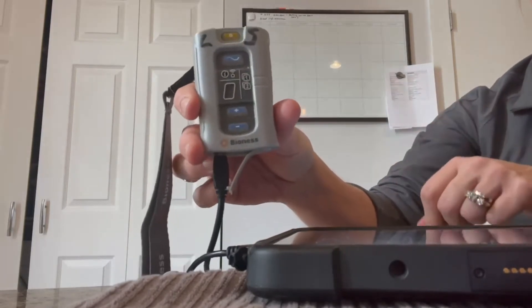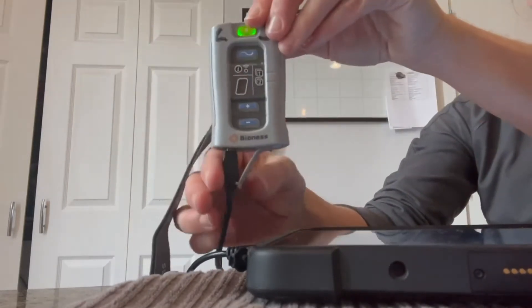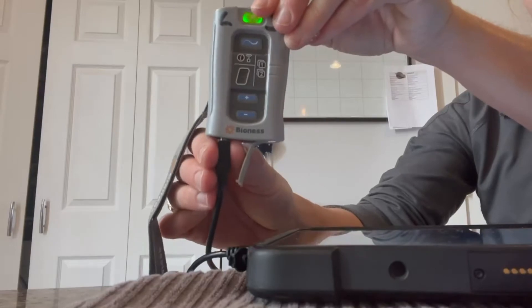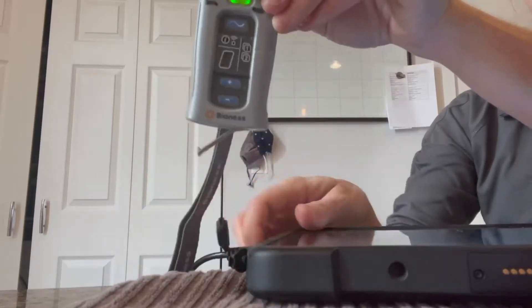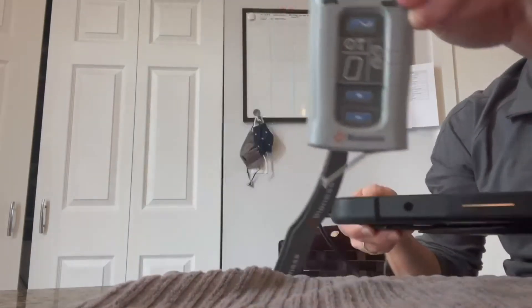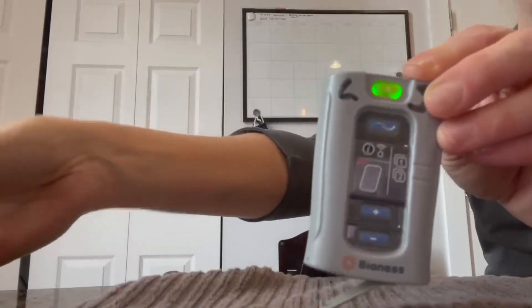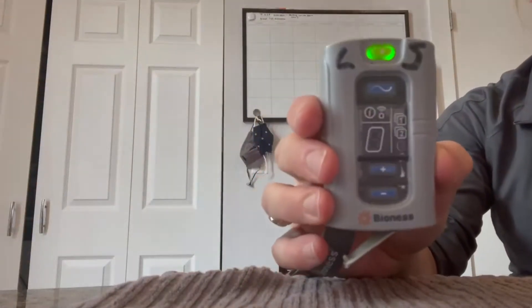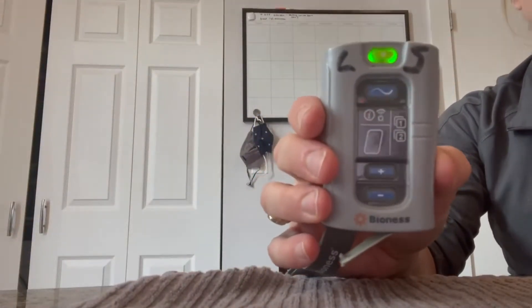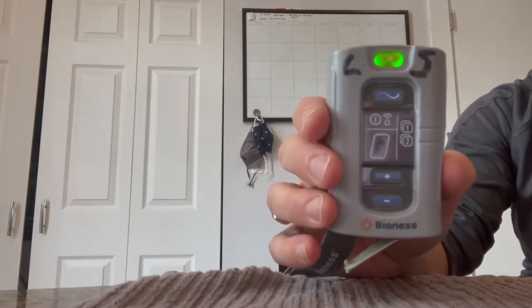From the program screen, you want to disconnect your control unit from the Clinician's Programmer. At this point, your current patient's parameters are stored in your control unit.